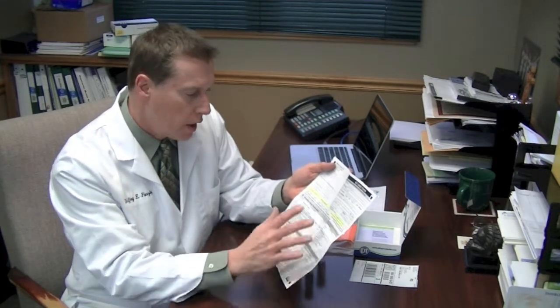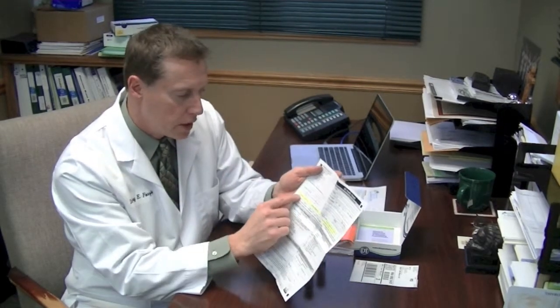This is the stool analysis by Diagnostechs company, the stool analysis for gut infections. So here's our requisition form, and we'll have all this filled out. Wherever you see a highlight marker, you have to pay attention to that. The sample was collected on, you have to write the date in. The samples were shipped on, you have to write that date in as well.